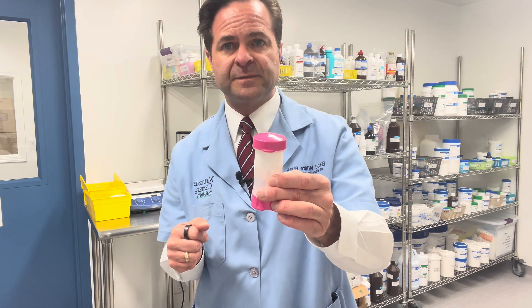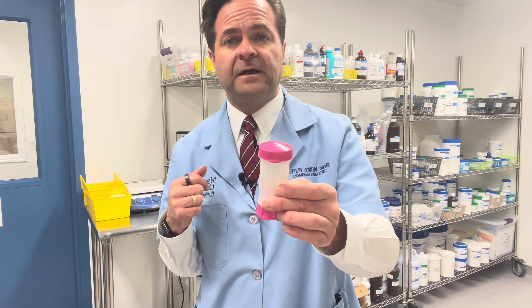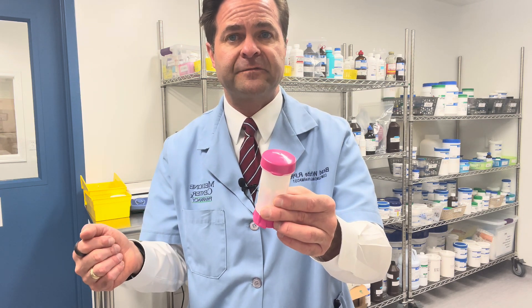The pink ones we use for estrogen therapies, the blue ones we use for testosterone therapies, and the white ones we use for combination therapies. So when we color code them, it's not uncommon that you might get one or two of these devices depending on the medication therapy you're using from your provider.